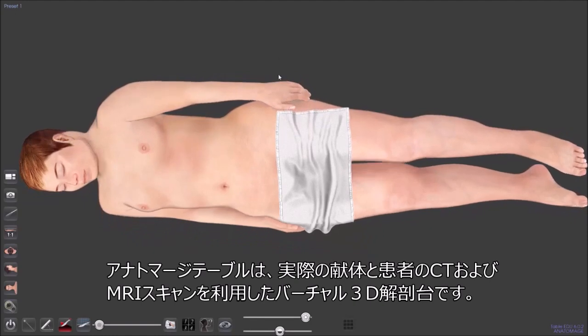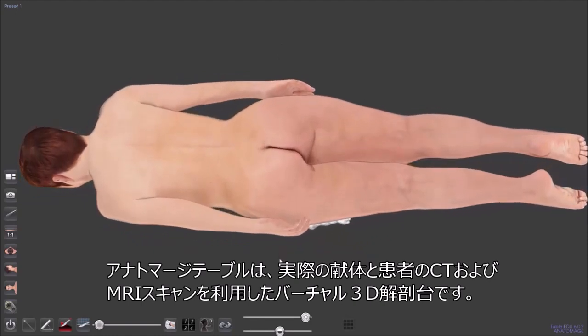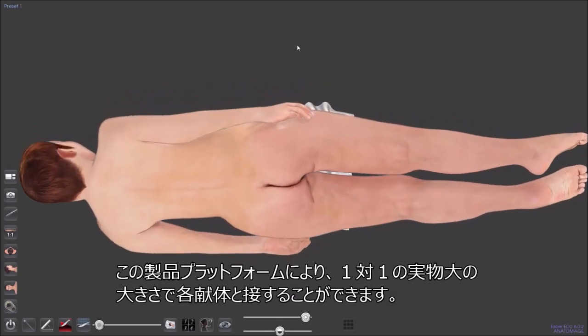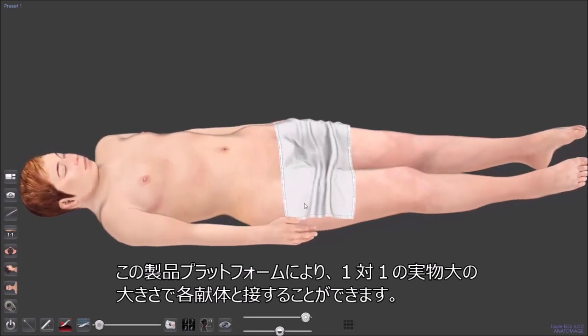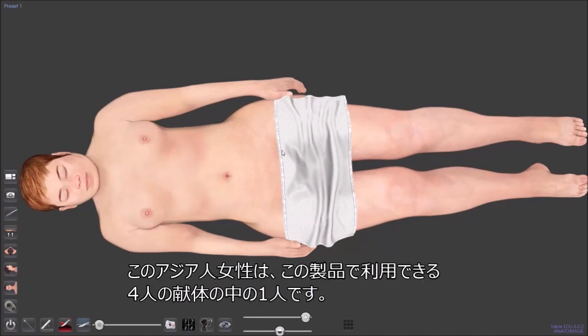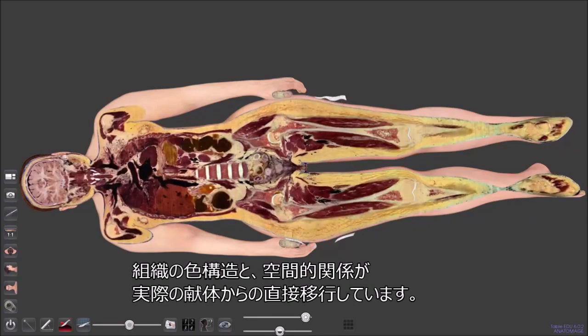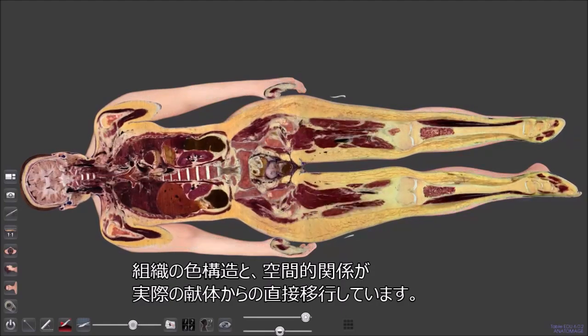The Anatomage Table utilizes real cadavers and patients' CT and MRI scans to be virtually dissected fully in 3D. The form factor of the Anatomage Table allows users to visualize and interact with each of our cadavers in a full one-to-one life-size view. This is our Asian female cadaver, one of 4 cadavers that we have in the Anatomage Table. You'll notice that all of the tissues, colors, structures, and spatial relationships were taken directly from the cadaver, which allows our cadavers to be highly accurate.